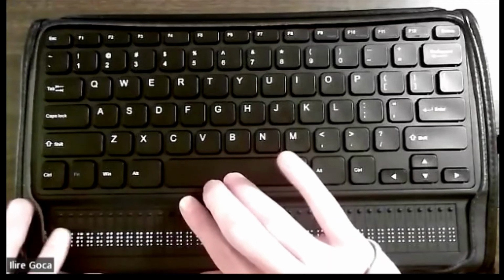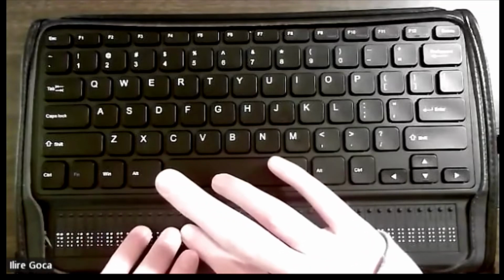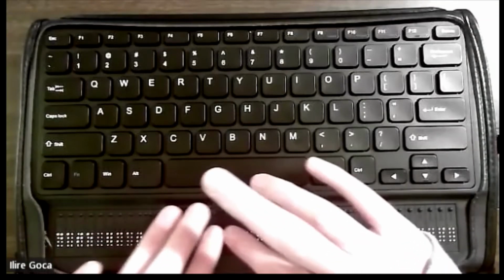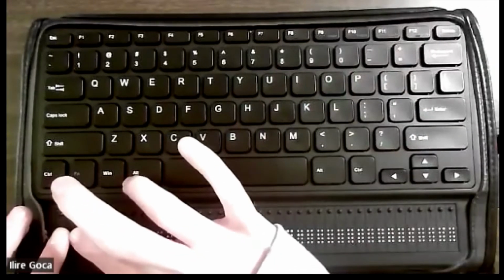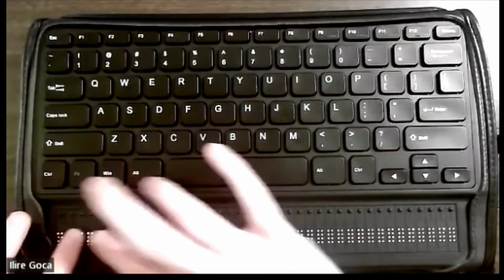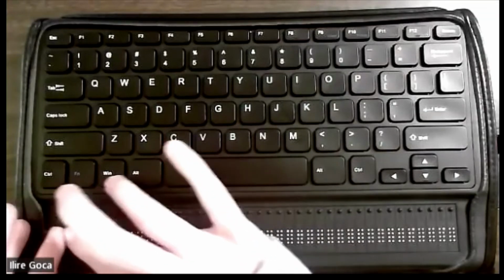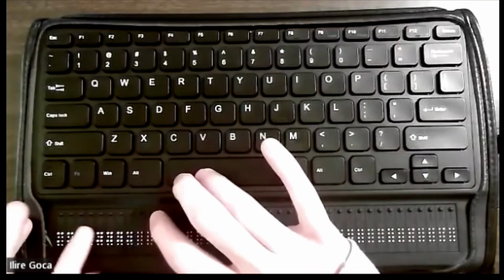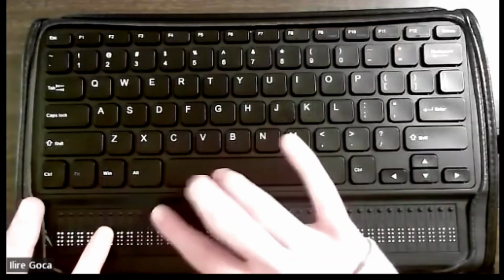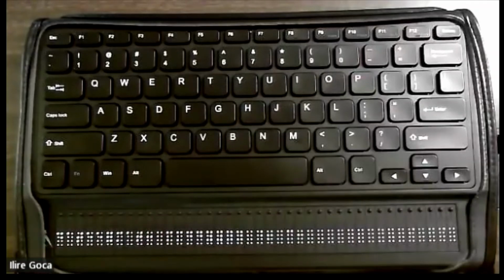I'm going to hit spacebar to get to this item, Date Format. This now appears on my braille display, and let's see what date format options are available by hitting enter. The first option available in this menu is day and month. The second option is day, month, year. The third option is month, day. The fourth option is month, day, year. The fifth option is year, month, day. And then you have the close button. So I'm going to hit enter on the close button. And now I'm back on the date format selection.